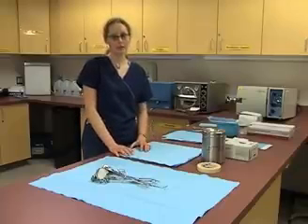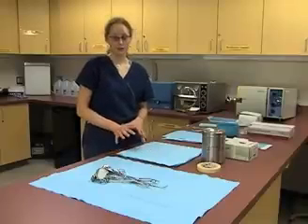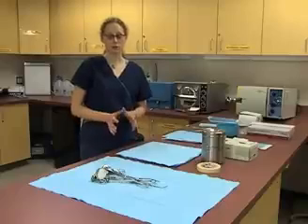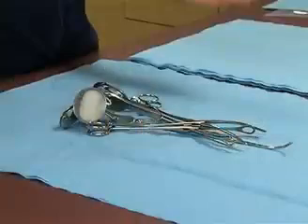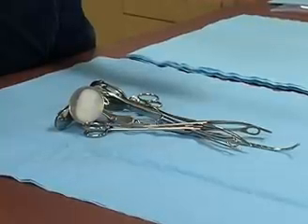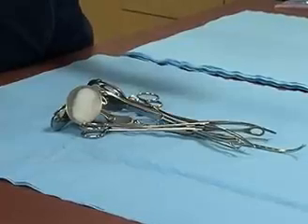After they're used, we're going to be cleaning them again before we can be putting them through the autoclave. Before we get started with the autoclave, we need to make sure we have all the necessary supplies. The surgical tools need to have been sanitized with a disinfectant, rinsed, and then dried off. They must be completely dry before going into the autoclave because we can't get any of the paper wet and we cannot be introducing any excess moisture to the autoclave.